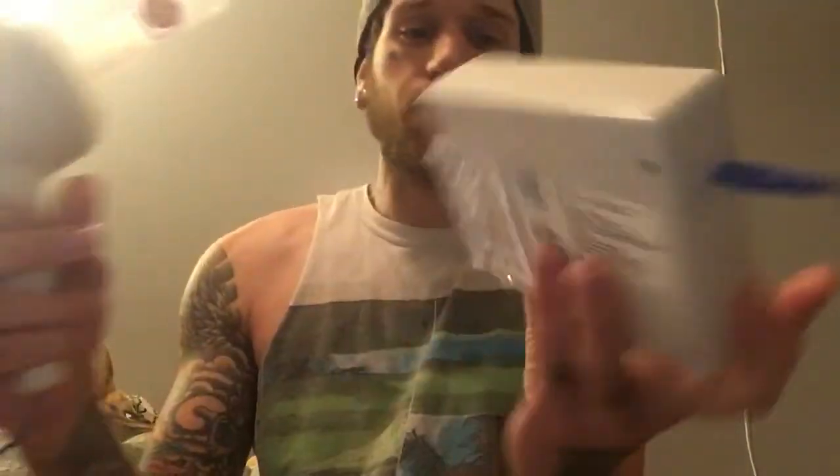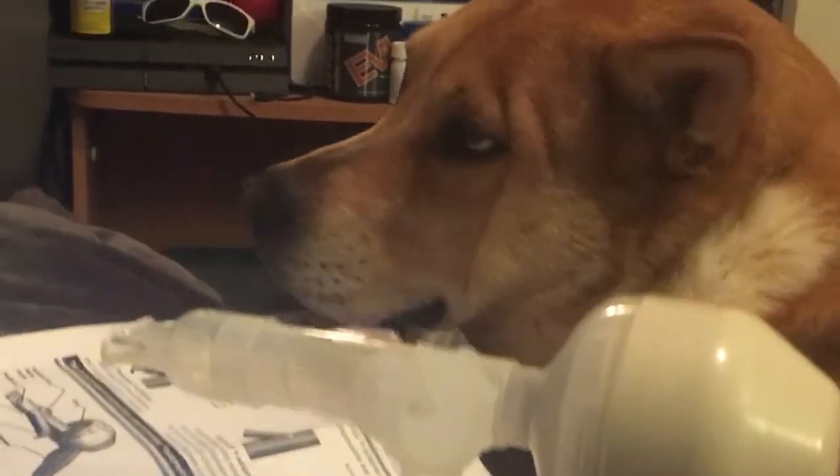Hit the power button, like so, everything turns on. You're going to hit low, right there, and then hit start — and it sounds a little something like this. [device demo] As you can see, the Vibrilung sounds like you're playing a game of Dig Dug the entire time. That sound is kind of annoying, but kind of funny. You can kind of get used to it. But that's not what you need the earplugs for.